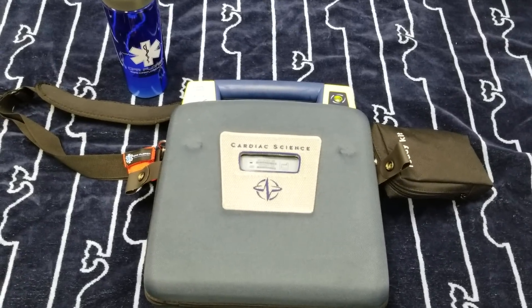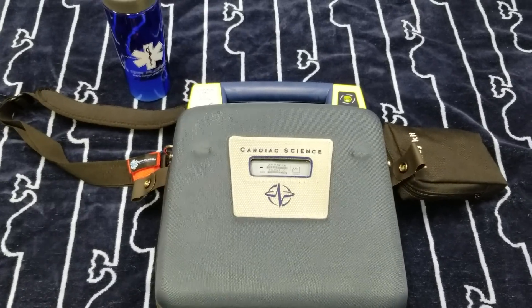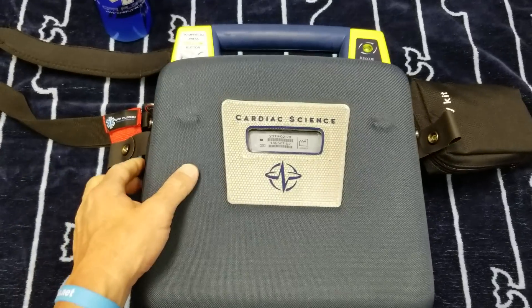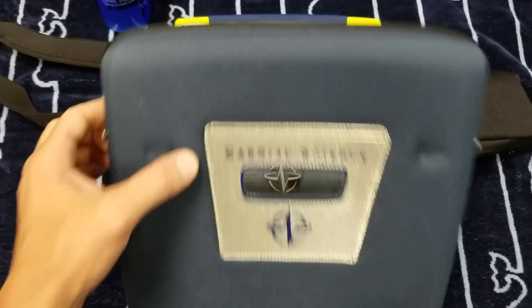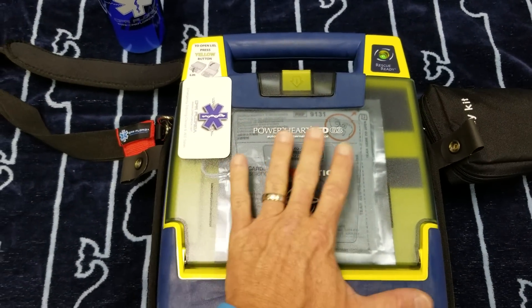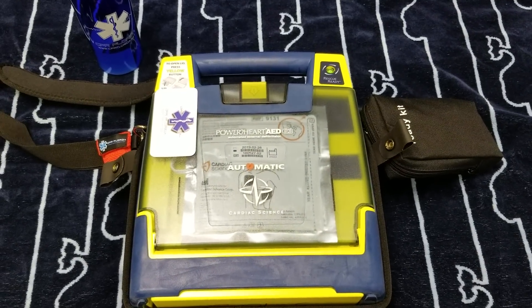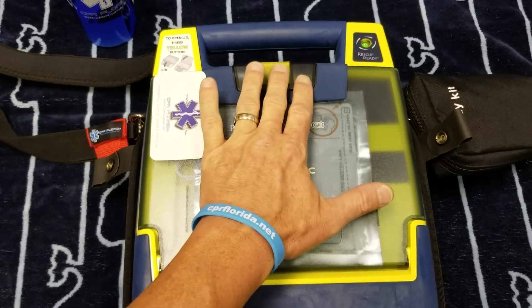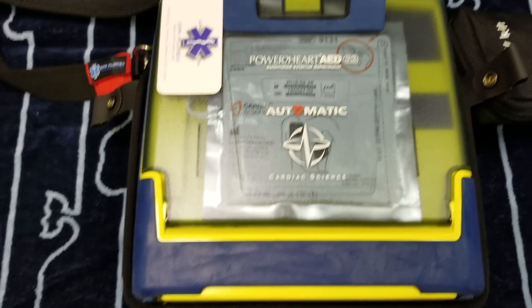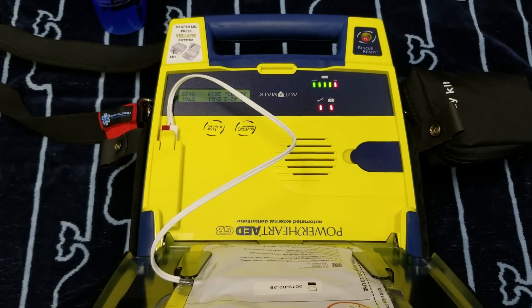I thought it would be good to do another video. This time we have the Cardiac Science Power Heart G3. The G5 is also basically the same setup. With the Cardiac Science, it always has a rescue-ready indicator up here. Unlike some AEDs like Philips that don't have covers, or the Medtronic CR Plus, on this Power Heart G3 when you open it, it starts talking right away.